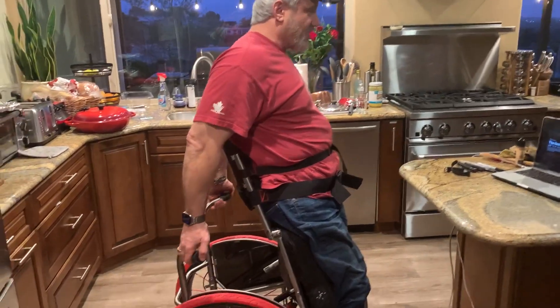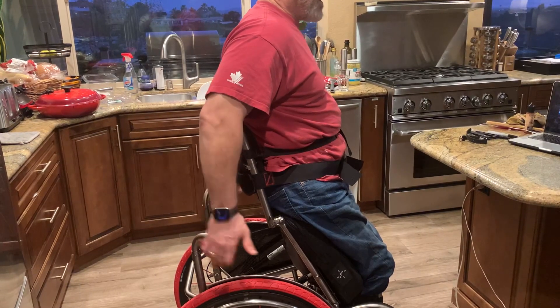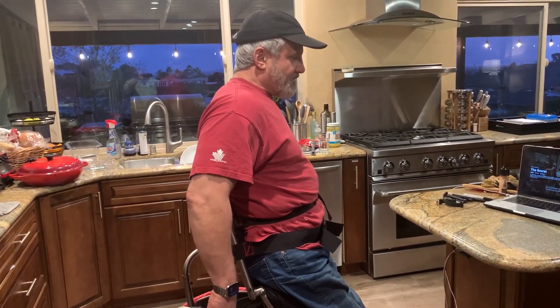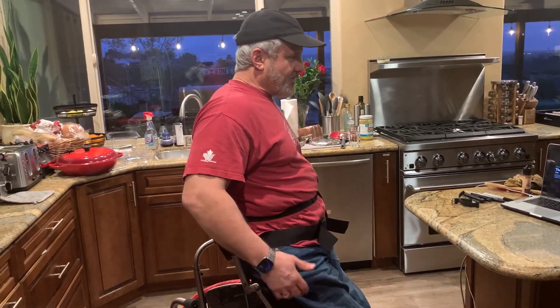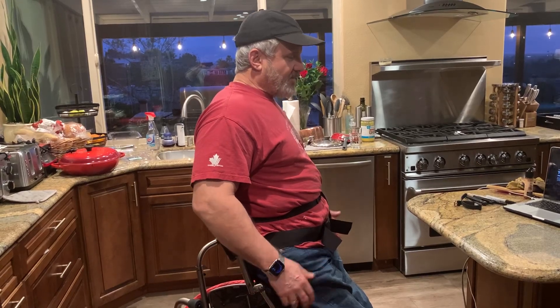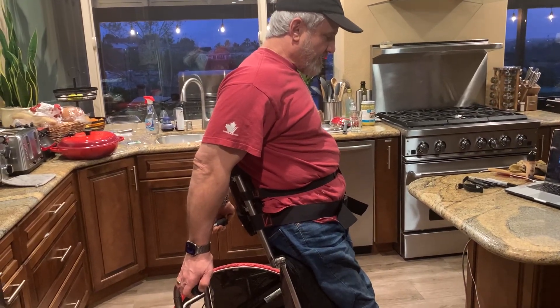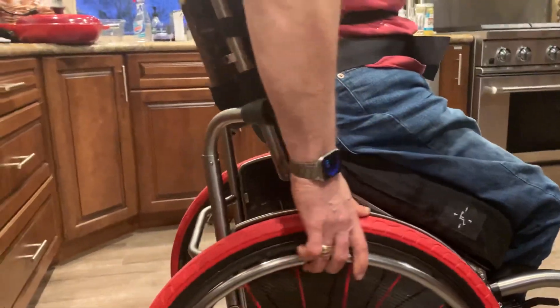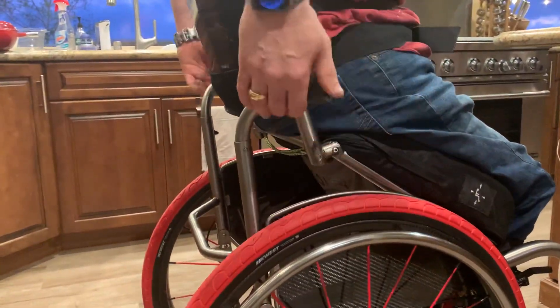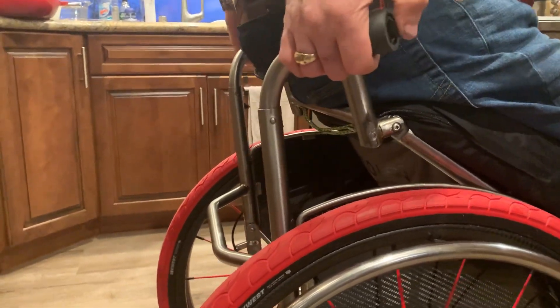I can be stable at any level up and down. These springs still have a good lift but it used to snap, and that was a bit hairy. Coming down, I was pulling with well over 200 pounds on each hand. Able-bodied people at some point could barely do it. Coming back down, you press — like I said you can stop and rest at any of the points coming back down, which is great. If you didn't want to lift all the way up, you could just be at a certain height and be pretty stable.